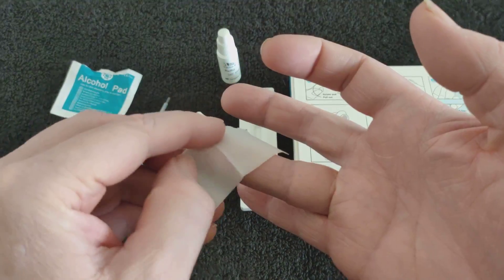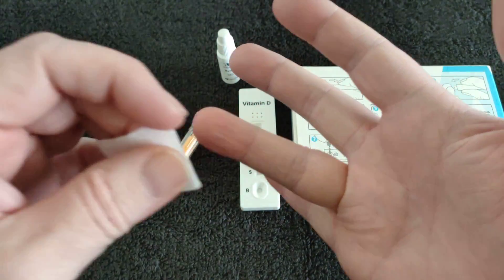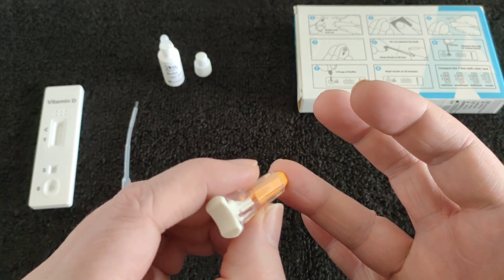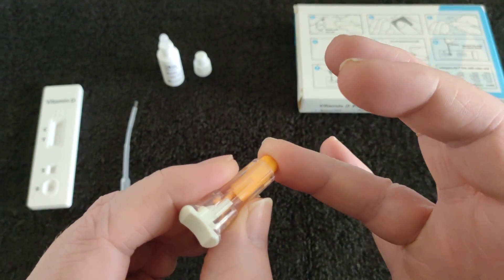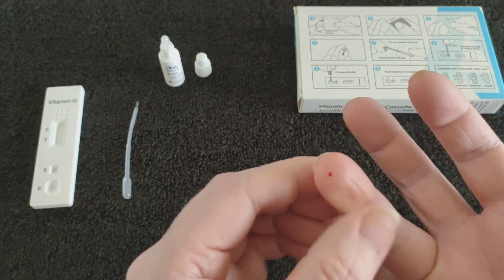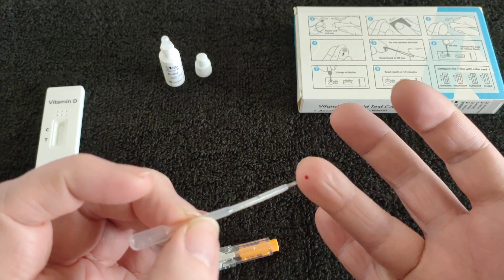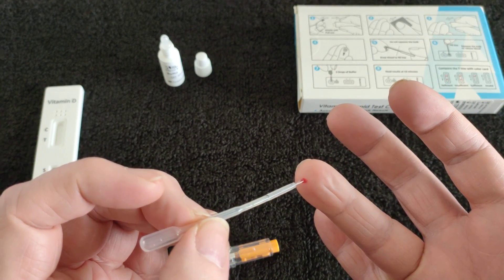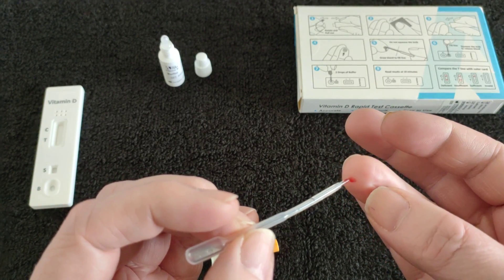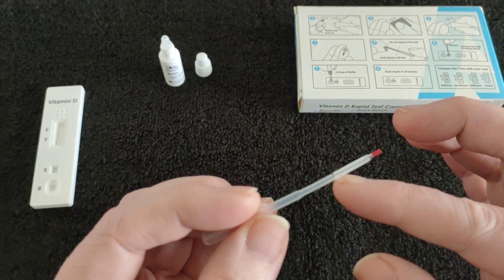I'm going to use this finger — wait until it dries, here goes. I'm pretty sure this is what you do, you just press it in. I don't think that's enough. Maybe. Don't press the bulb at the top — that's for squeezing it out of the end.